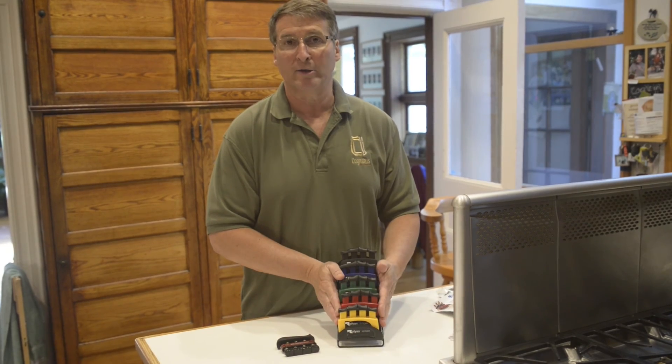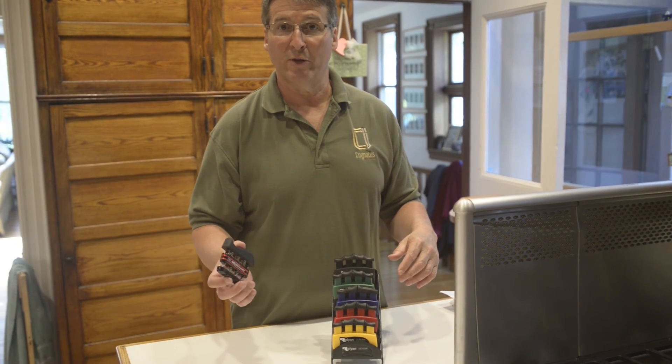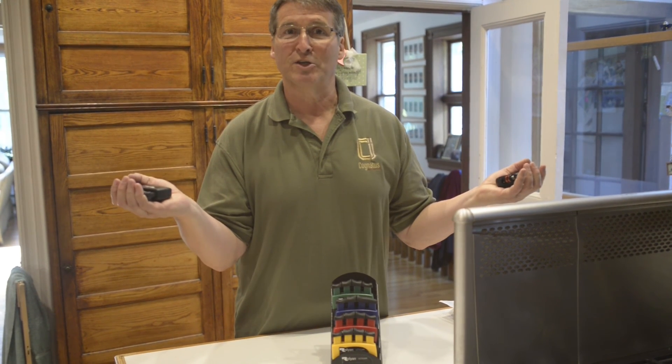This is an exclusive product to Patterson. What we usually do at shows is have a DigiFlex with us. I say: I put it in one hand, I take the same strength UltiGrip and put it in the other hand, and you have your sale finished.